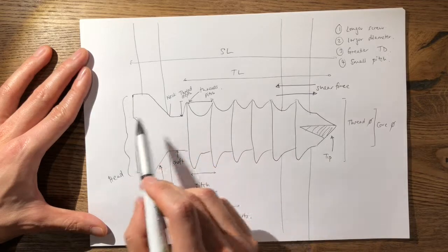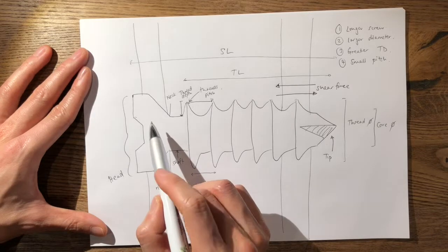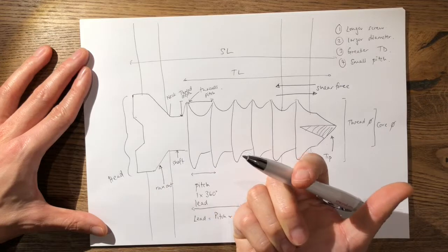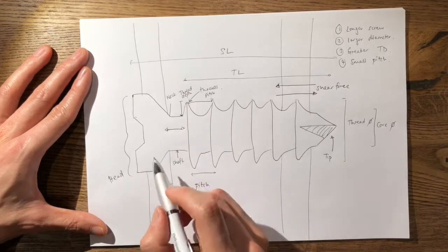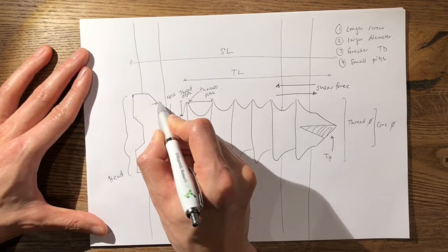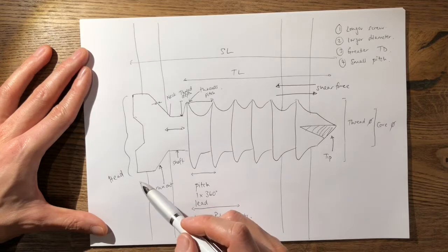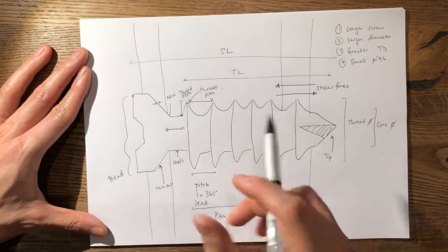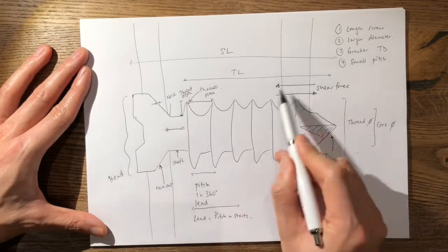As it continues to advance, the head engages into the proximal cortex and arrests the linear motion of the screw. This creates a tensile force within the screw itself, with an opposite compressive force as the screw engages the bone or plate. It is the balance of these tensile forces and the shear forces at the thread interface that occurs with every single turn as it engages.